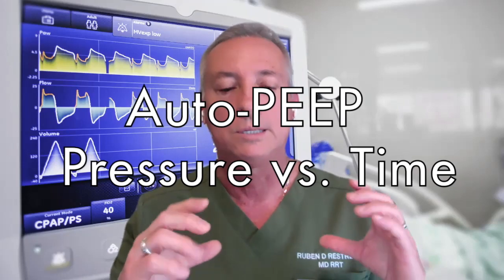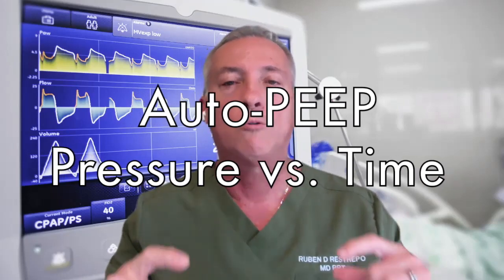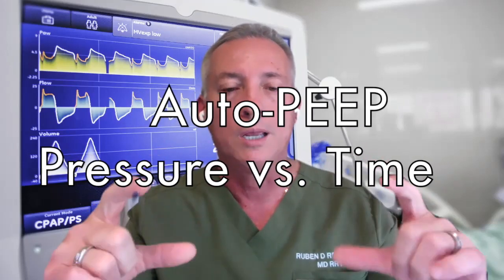So while you may detect gas trapping, what you need to confirm is the presence of auto PEEP upstairs on the pressure versus time. And for that, you have the expiratory hold. The key is, yes, you may memorize that that's exactly what you have to do, but how do you recognize that you have auto PEEP?